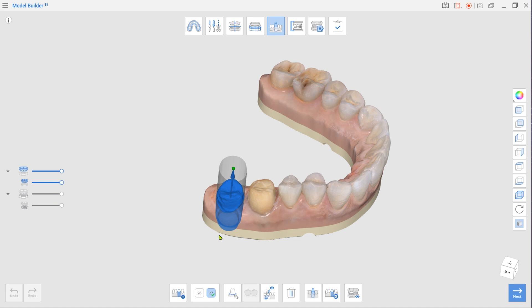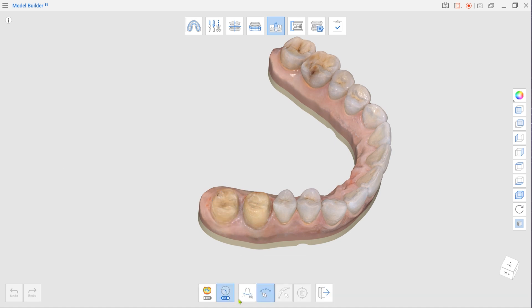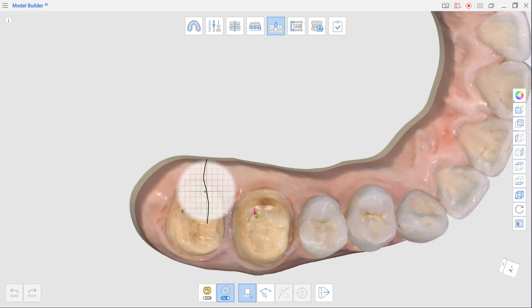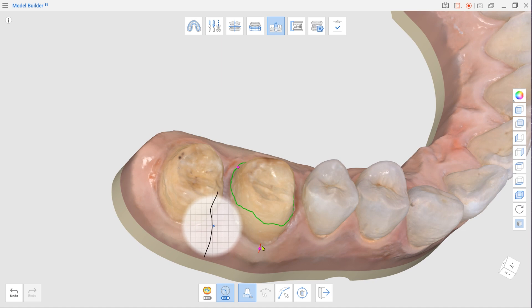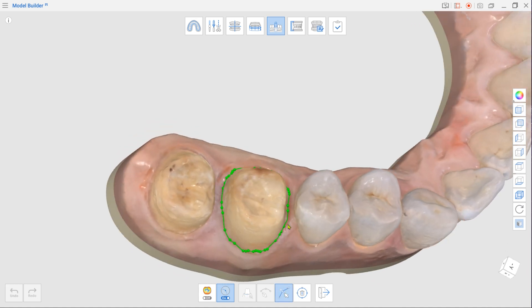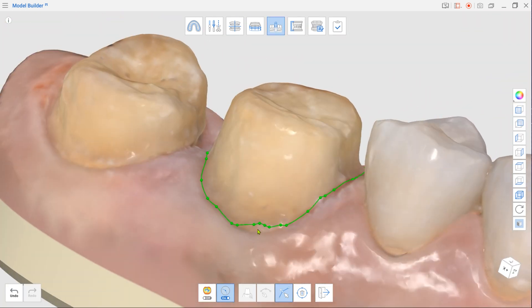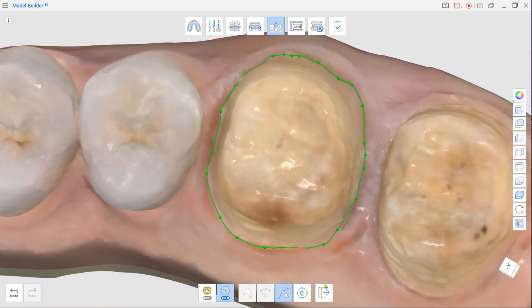If there are no imported margins, first select a tooth number in the toolbox and click Margin Line. Then, in the Margin Line toolbox, select Auto Creation. Zoom in on the prepped tooth and select a few points on the data. Use the Edit tool to correct the automatically created margin. Exit when you are done and repeat the process for other teeth.